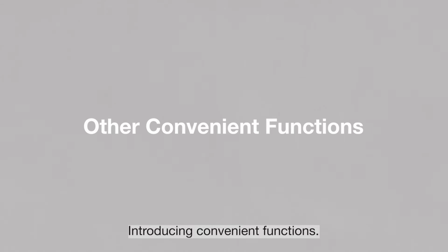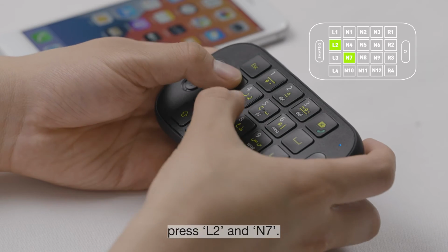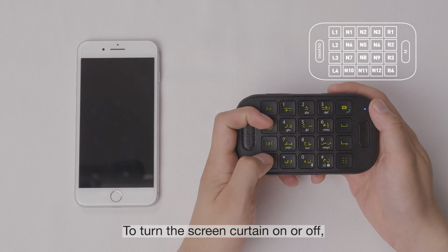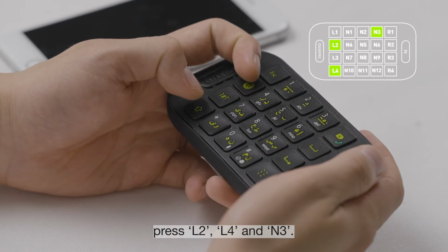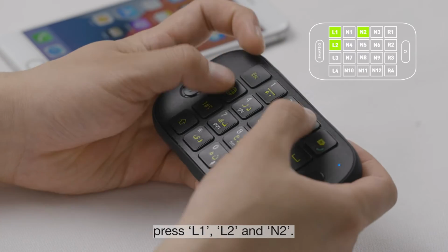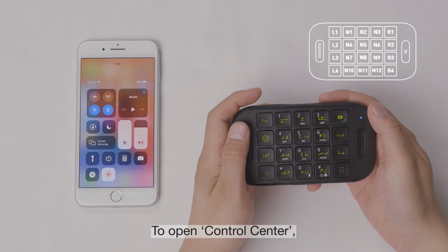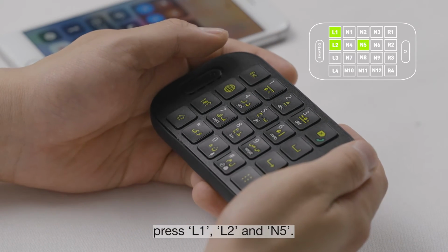Introducing convenient functions. To mute or unmute VoiceOver, press L2 and N7. To turn the screen curtain on or off, press L2, L4, and N3. To open the notification screen, press L1, L2, and N2. To open Control Center, press L1, L2, and N5.